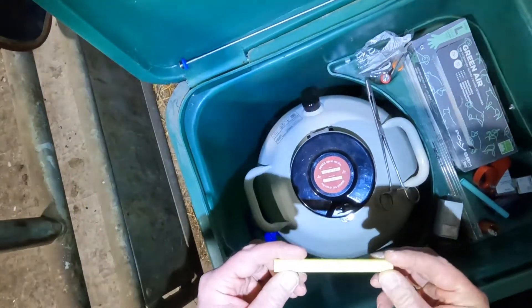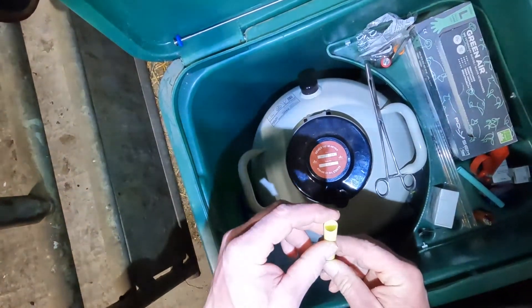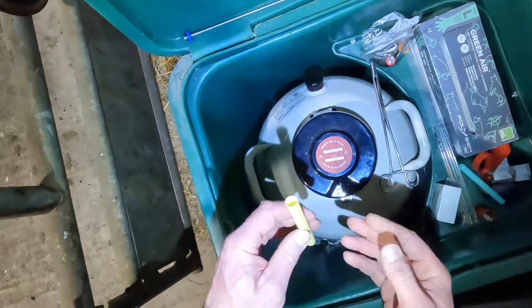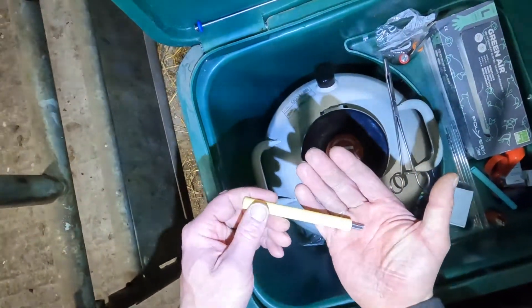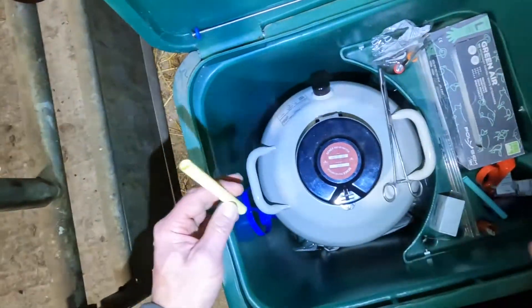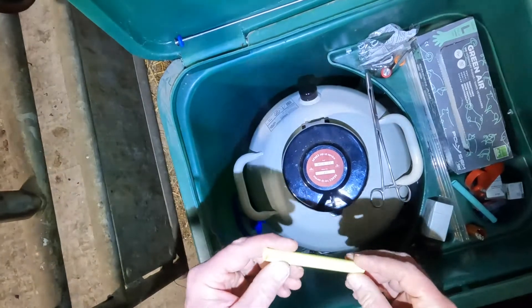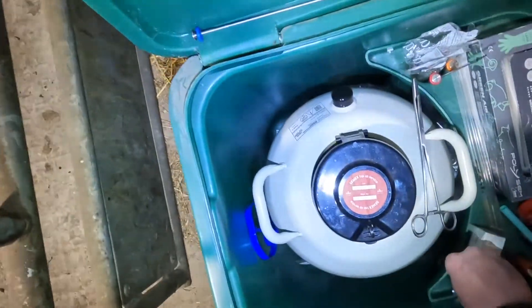It's more of an issue with these solid pots because they've got to be totally submerged in liquid nitrogen before the temperature balances. The way the delivery companies get around this is by putting weights in the pot. 95% of the time the weight works correctly and they're fine, but there is the occasion where somebody forgets to put a weight in or gets the wrong weight in.